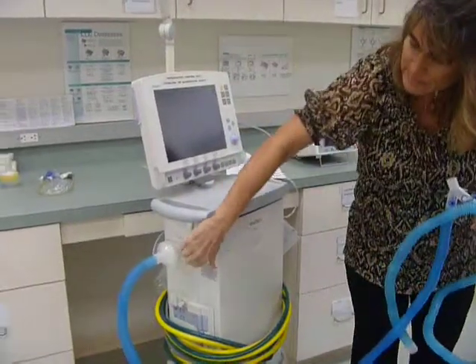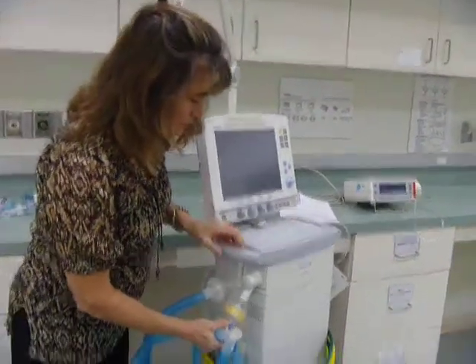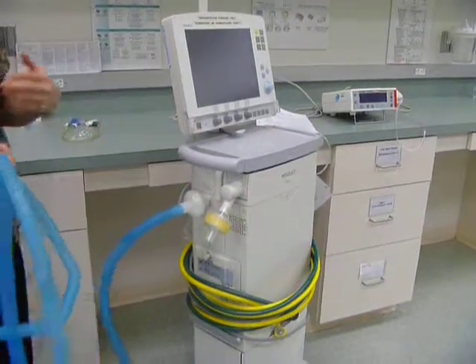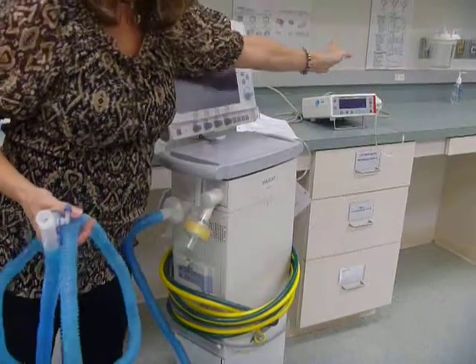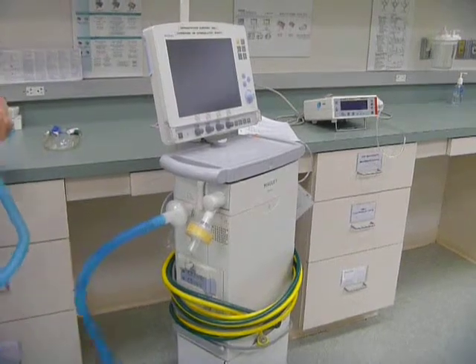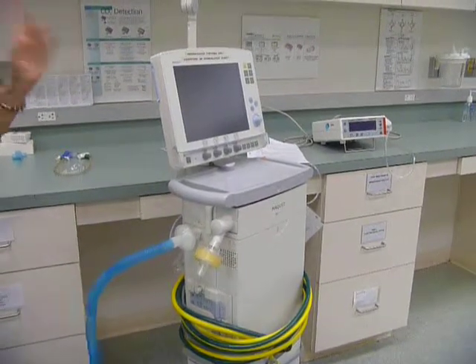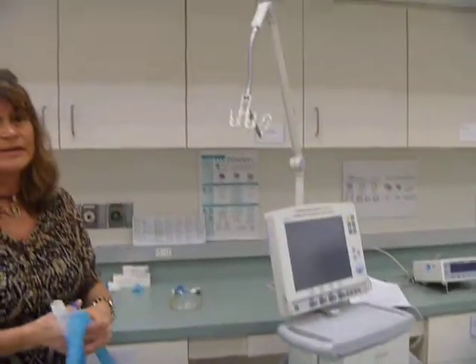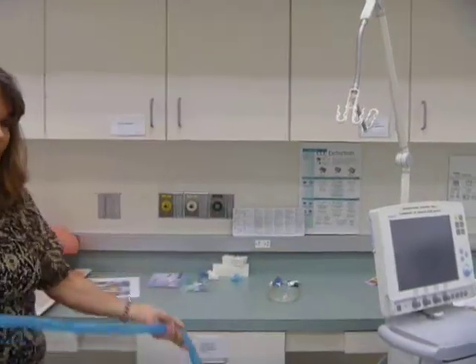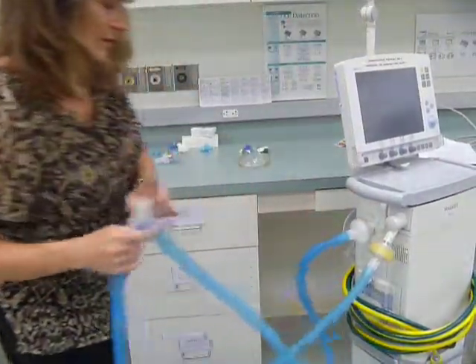Right. So when it comes out from the patient and goes into the machine, we want to filter that gas too. So if they're exhaling bacteria, viruses that we don't want to breathe in, it's going to get filtered before it goes out to the atmosphere. So if you're in a respiratory isolation room, it's not like the room is full of, let's say it's tuberculosis, because everything will get trapped in this filter. Of course, when we're in the room, though, we still have to follow the respiratory isolation guidelines, but the filter will filter out all of the bacteria and viruses. So we're going to connect with a push and a twist, and that's going to take our exhaled air from the patient out to the atmosphere.